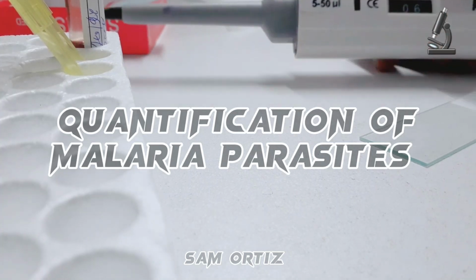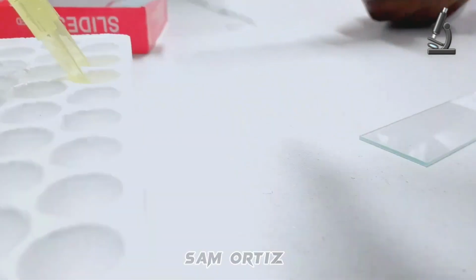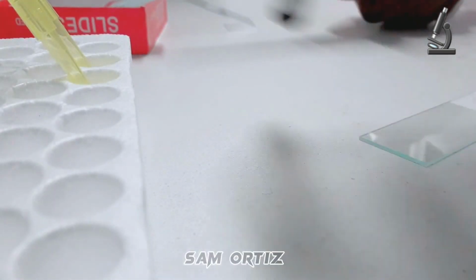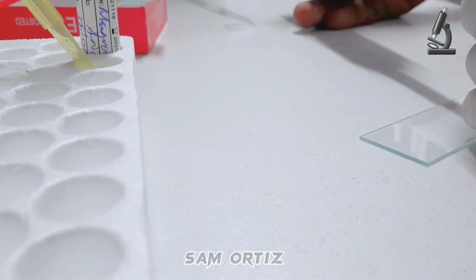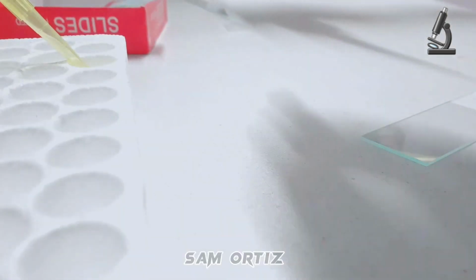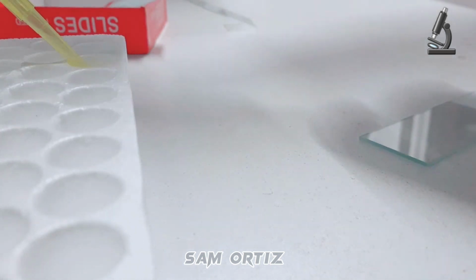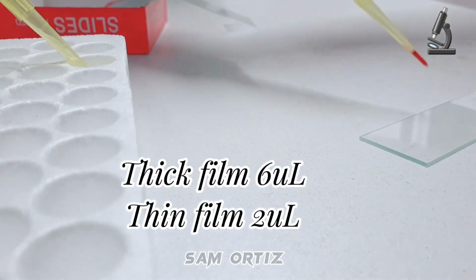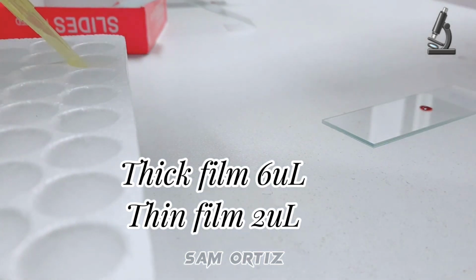For quantification of malaria parasite, we always use the thick and thin film. Of course, you can see I have a micropipette adjusted to 6 microliters. For the thick film, we use 6 microliters of blood, and for the thin film, we use 2 microliters of blood. Of course, it's always standard when examining malaria, you use both the films, thick and thin.